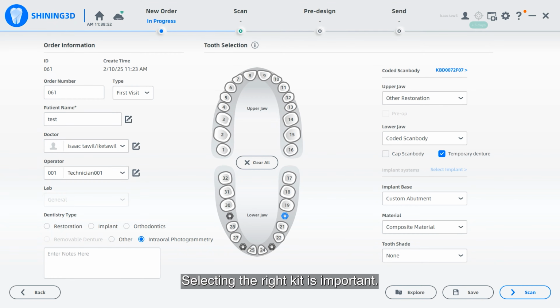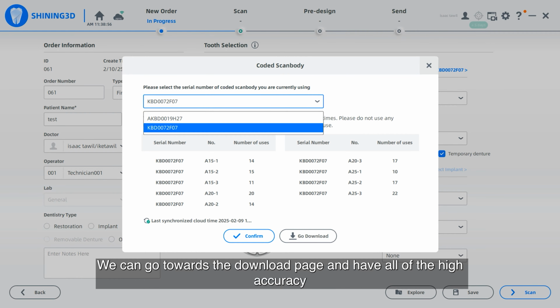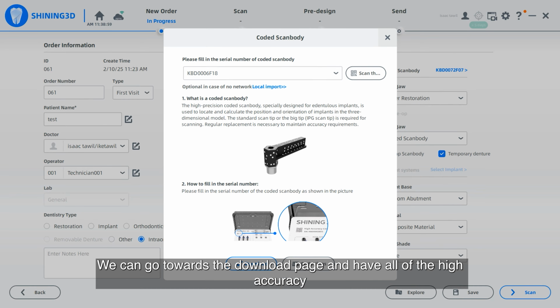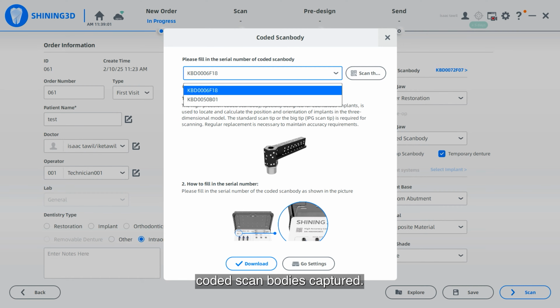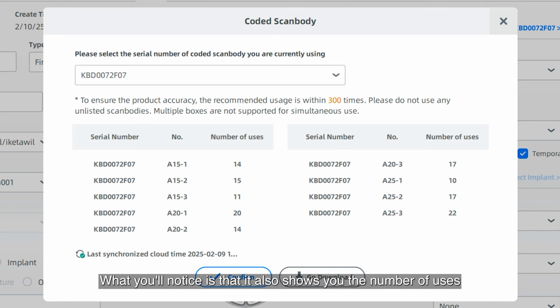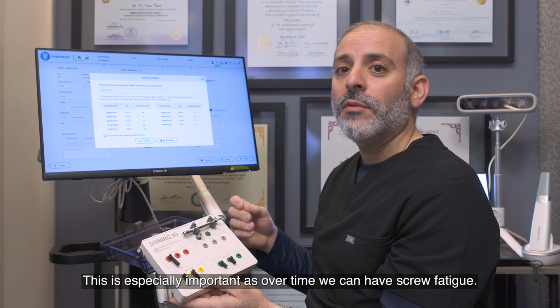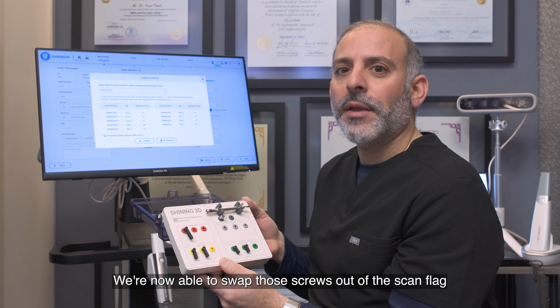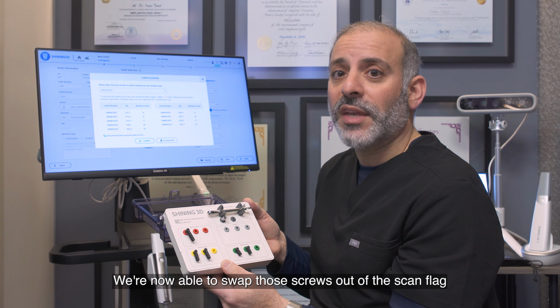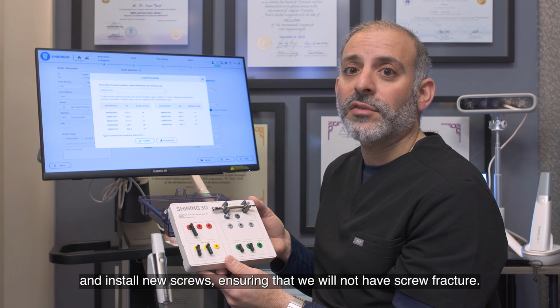Selecting the right kit is important. We can go to the download page and have all of the high accuracy coded Scanbodies captured. What you'll notice is that it also shows you the number of uses of each Scanbody. This is especially important as over time we can have screw fatigue. We are now able to swap those screws out of the scan flag and install new screws, ensuring that we will not have screw fracture.